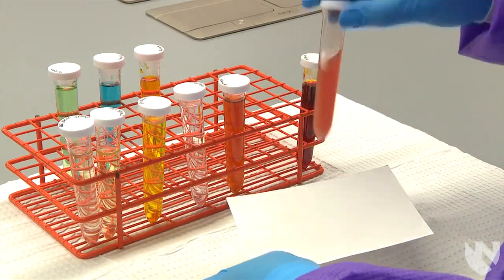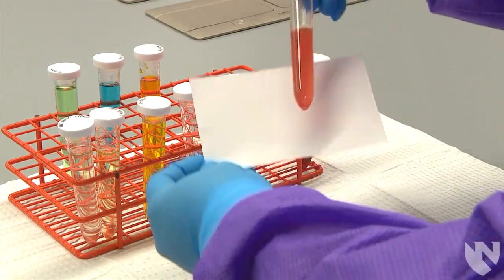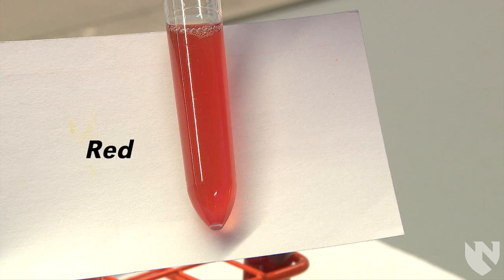Next, we have what we call a red urine. You may see a clear red or even a darker red shade.